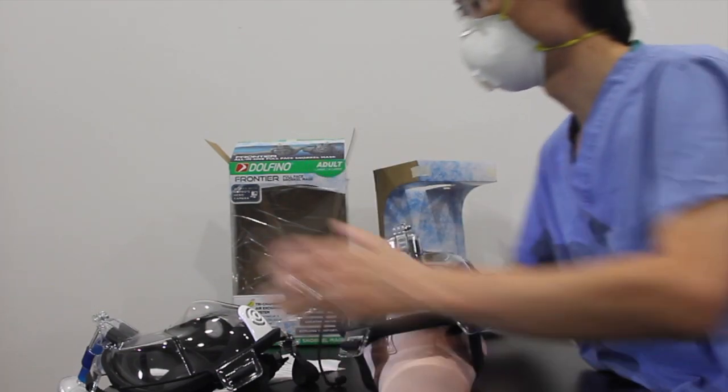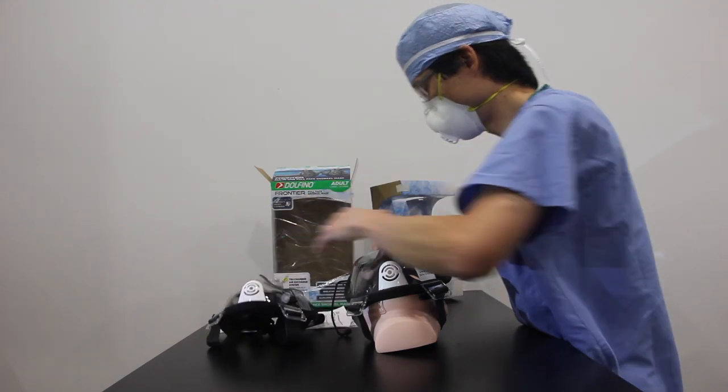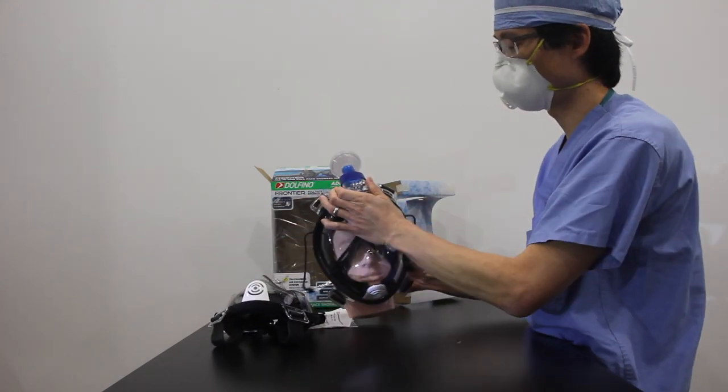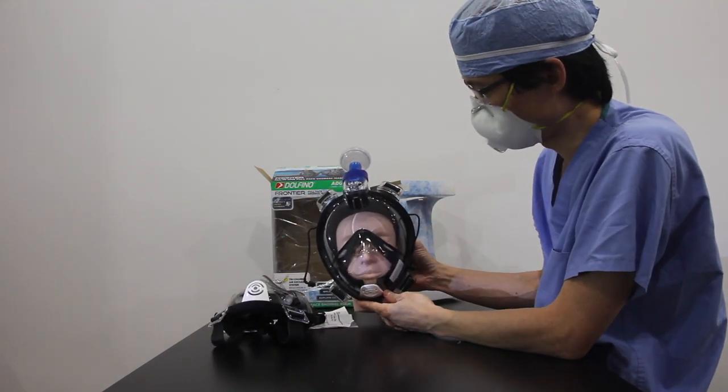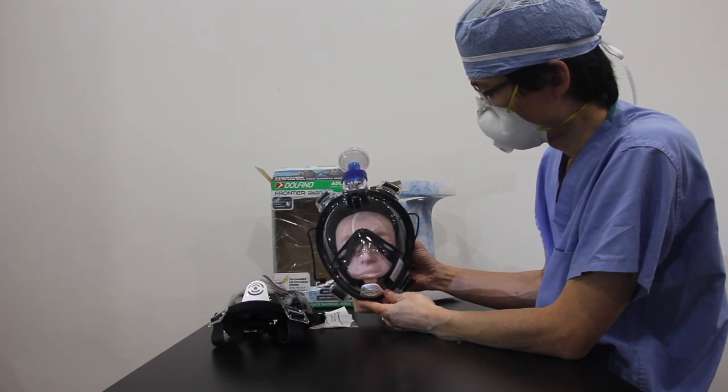So take this adapter off here, put it on this one. And you can see how nice that whole section looks.